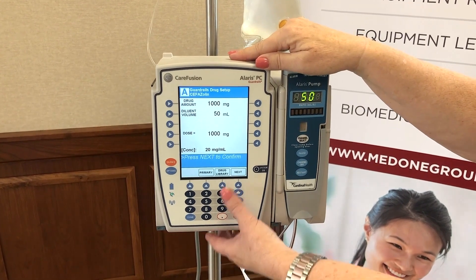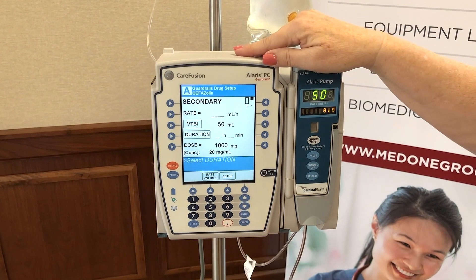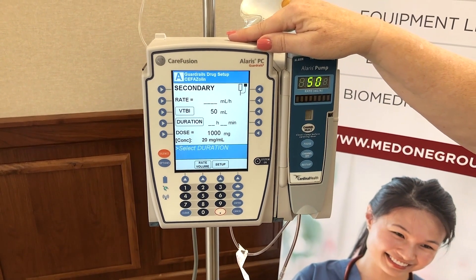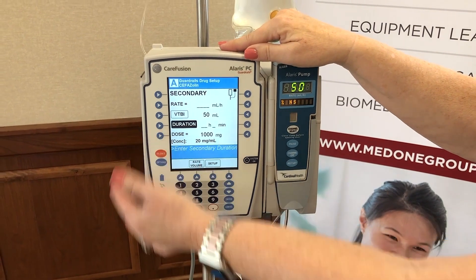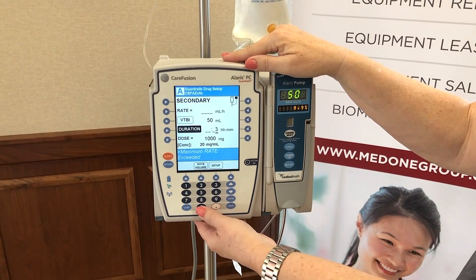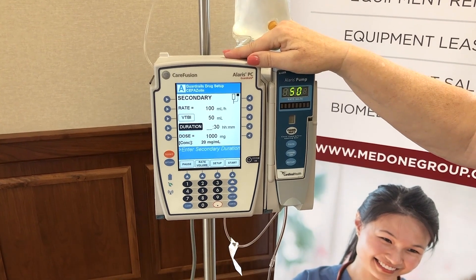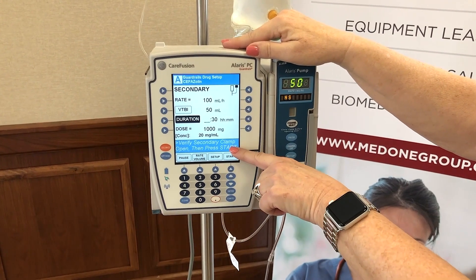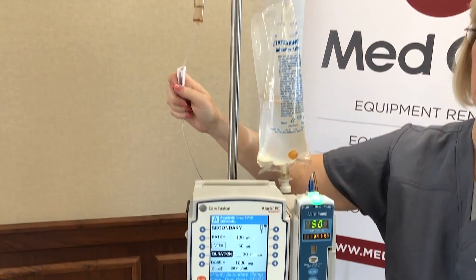We're going to press next to confirm that concentration, and then we're going to set a duration because we always give ANCEF over 30 minutes, so we're going to type in 30. Then we're going to read our prompt window — the blue bar that says verify your secondary roller clamp is open, then press start.